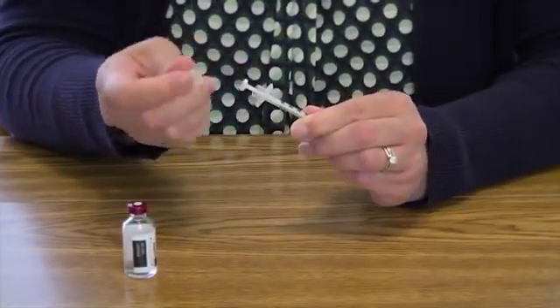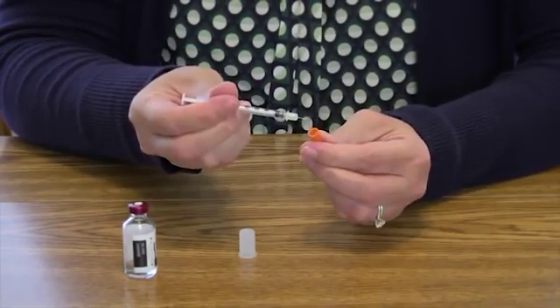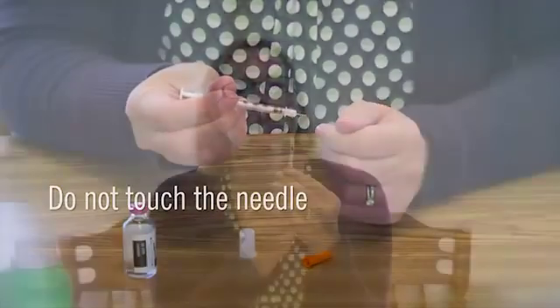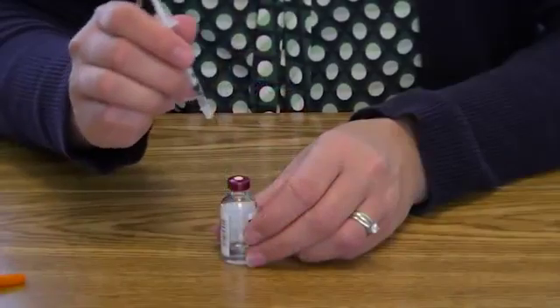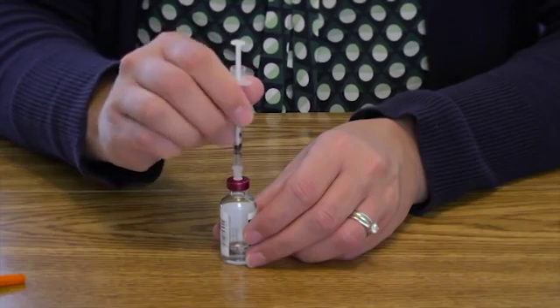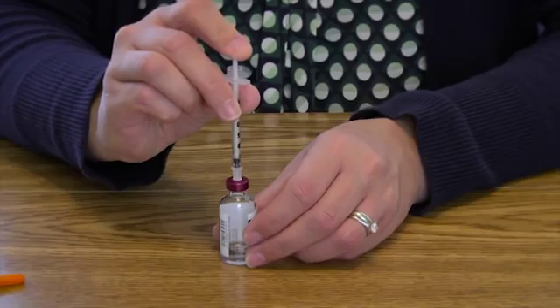Remove the caps from both the top and bottom of the insulin syringe. You may need to twist the cap to get it to come off more easily. Do not touch the needle. Pull back on the plunger to the unit mark for the insulin dose that has been ordered for you. Put the bottle on the table. Insert the needle straight into the top of the bottle through the rubber stopper. Push the plunger down to inject the air into the bottle.